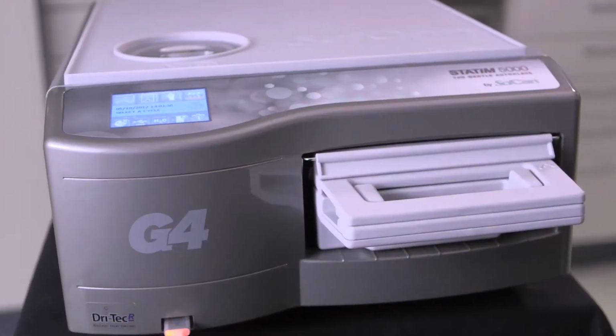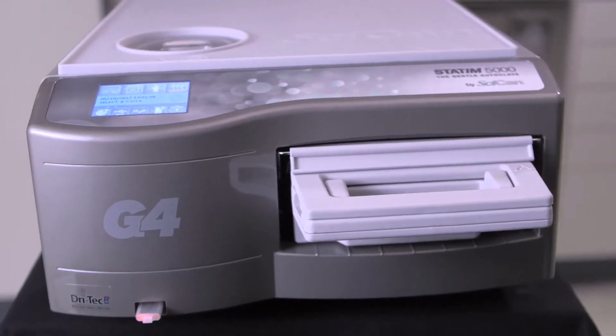Welcome to SciCan's G4 installation video. In the next few minutes, we will walk you through the installation process of the unit.